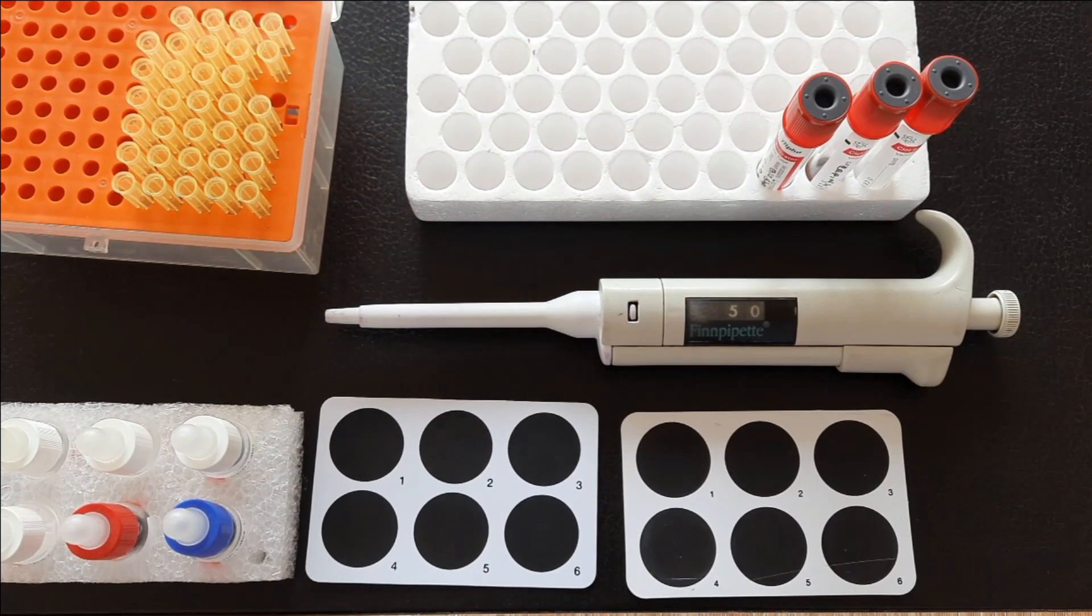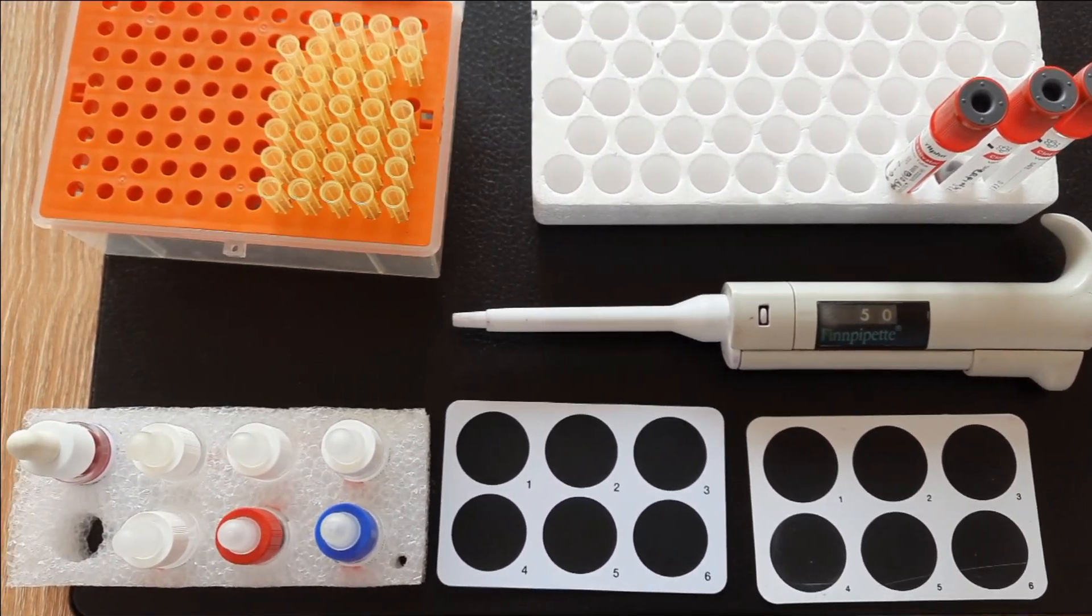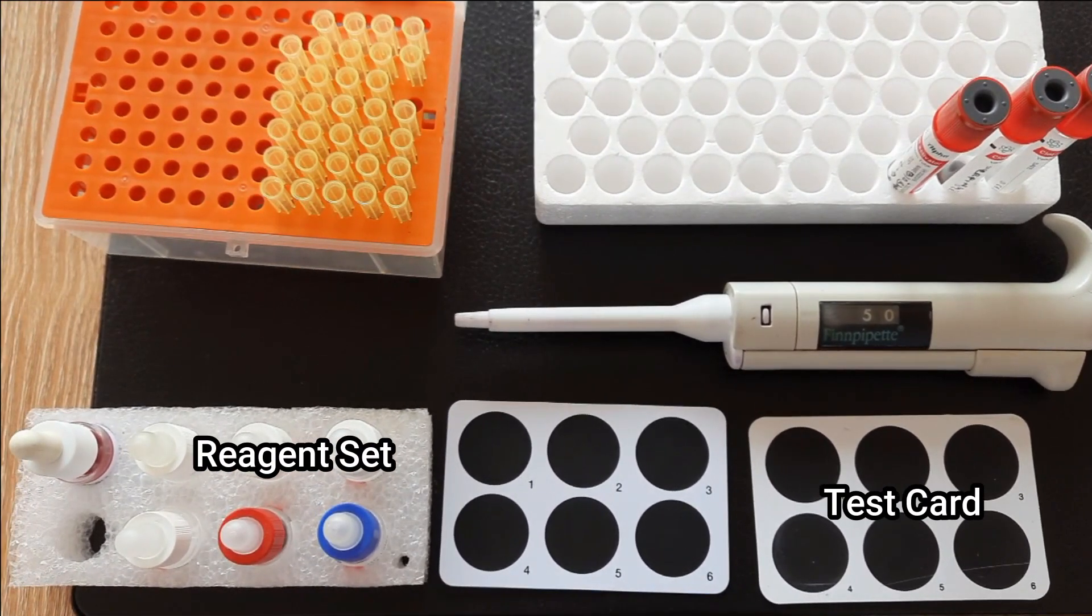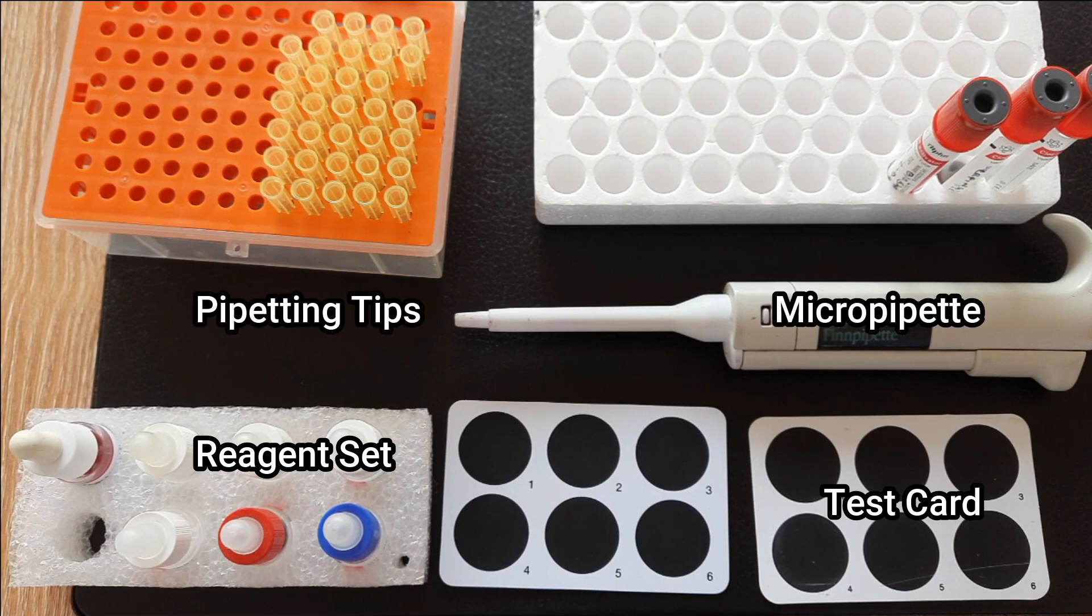First, let's see what tools are needed. You will need test cards and reagent set provided with a kit, a micro pipette, pipetting tips, mixing stick, and of course, patient serum sample.